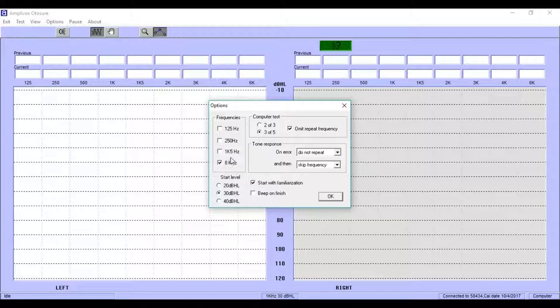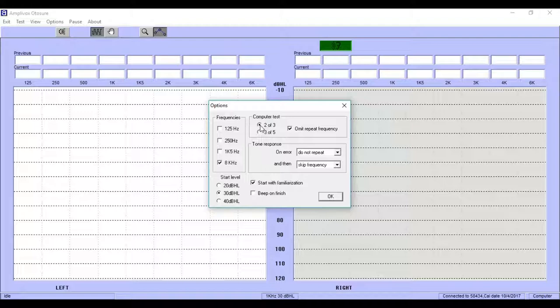The system automatically stores a threshold if the response made to 2 out of 3 or 3 out of 5 signals are at the same hearing level. We select 2 out of 3.